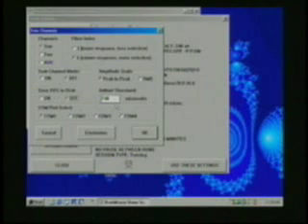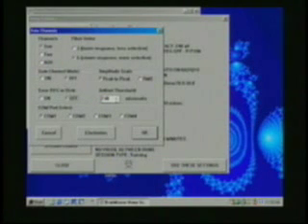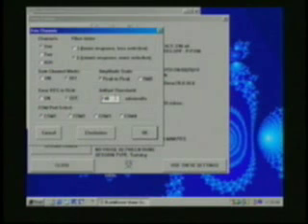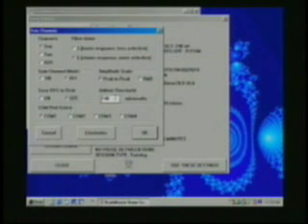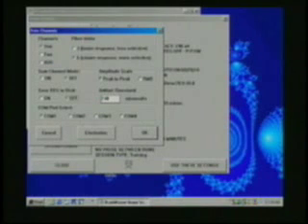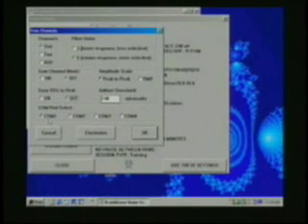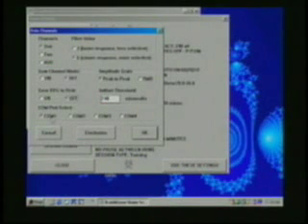The artifact threshold is normally set to a high value of 240 microvolts. This could be lowered if you desire in order to reject more of a motion artifact or eye blink artifact. And the COM port is shown here again. We're on COM port 1 so we're going to leave that as it is.